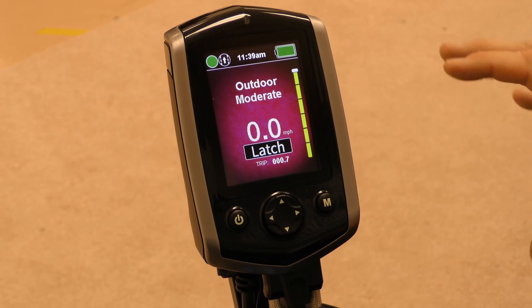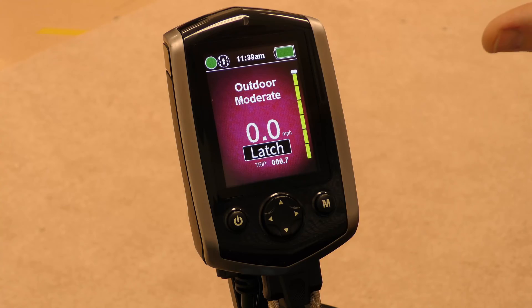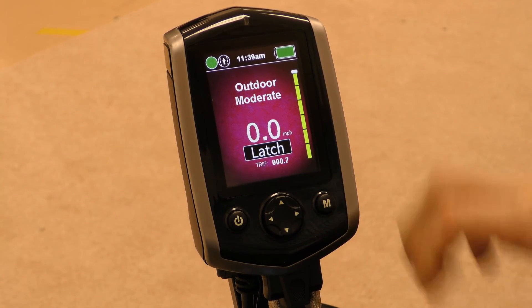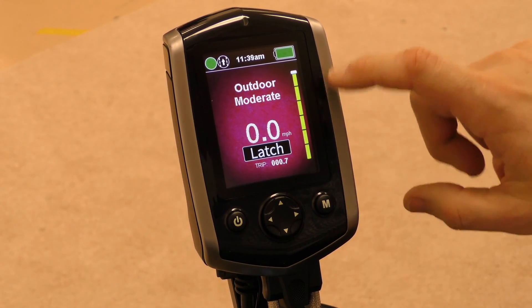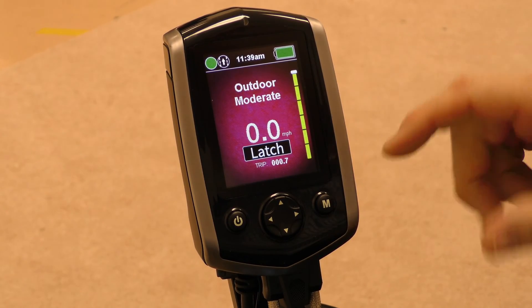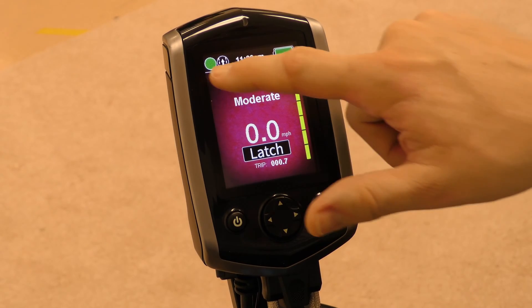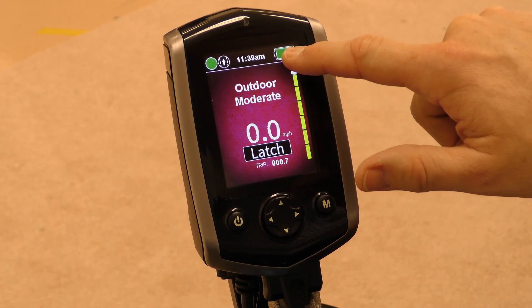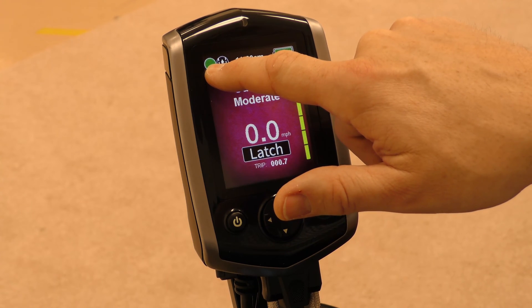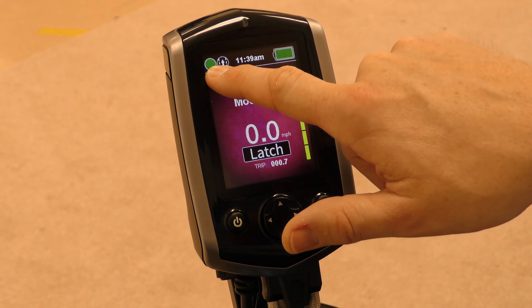With Q-Logic 3, we've really focused on making the screens user-friendly. If we look at this screen here, it very much mimics the screen on a cell phone. Our eyes using cell phones are trained to go to the top of a cell phone to look at battery, the time, and the status of our signal — or in this case, it would be the status of the power chair.